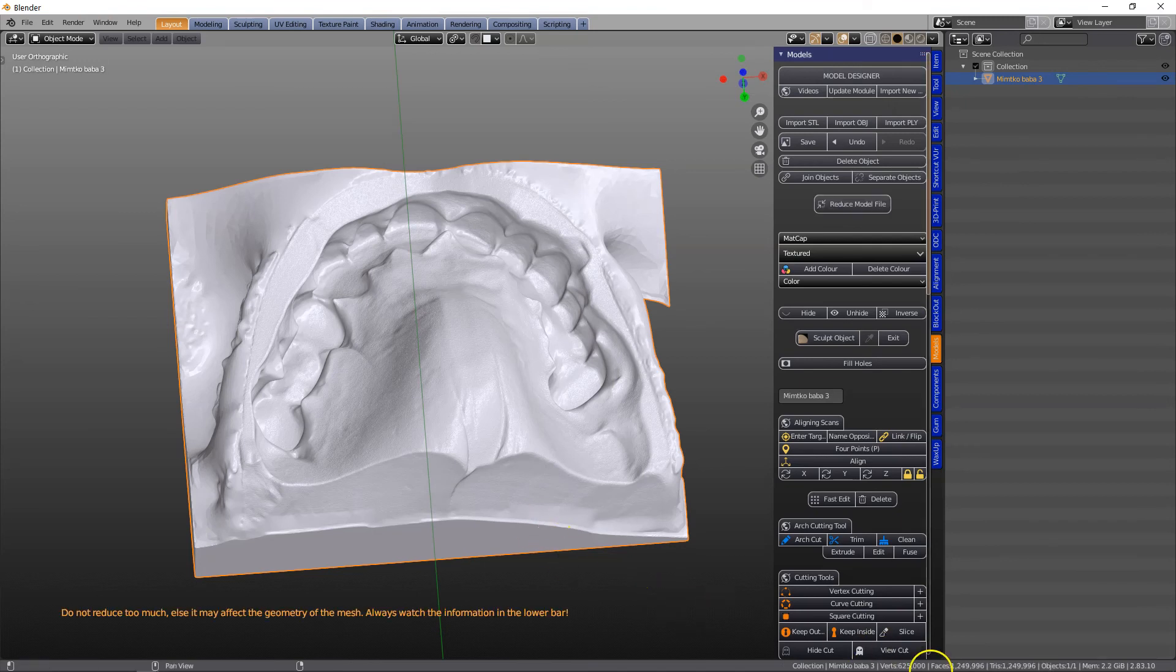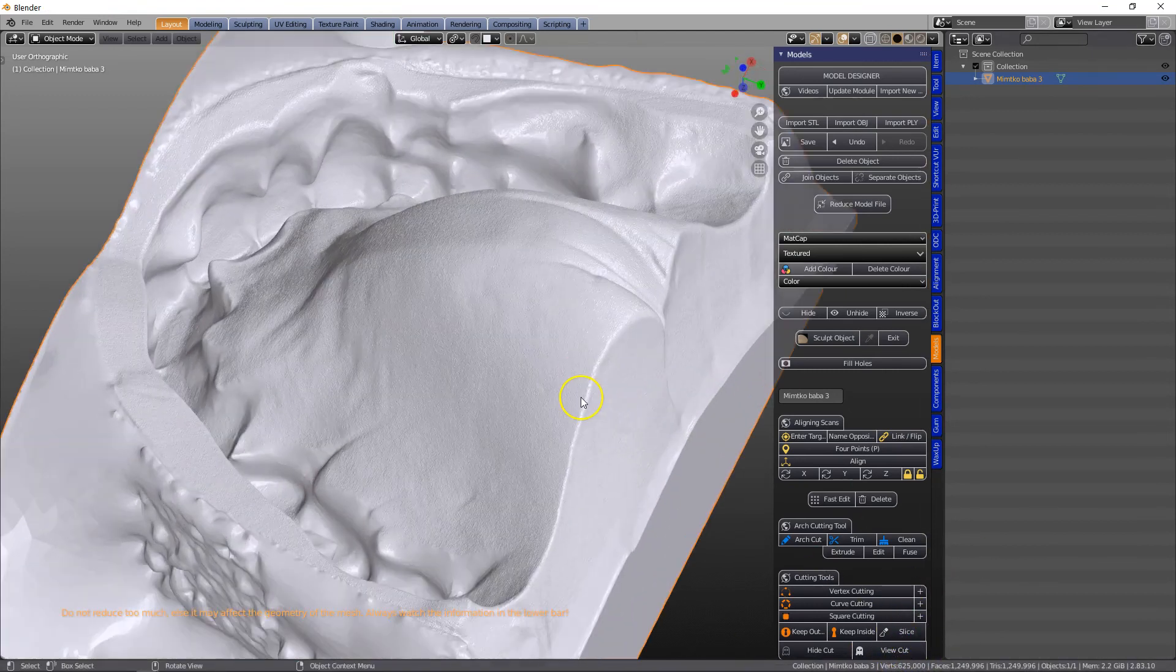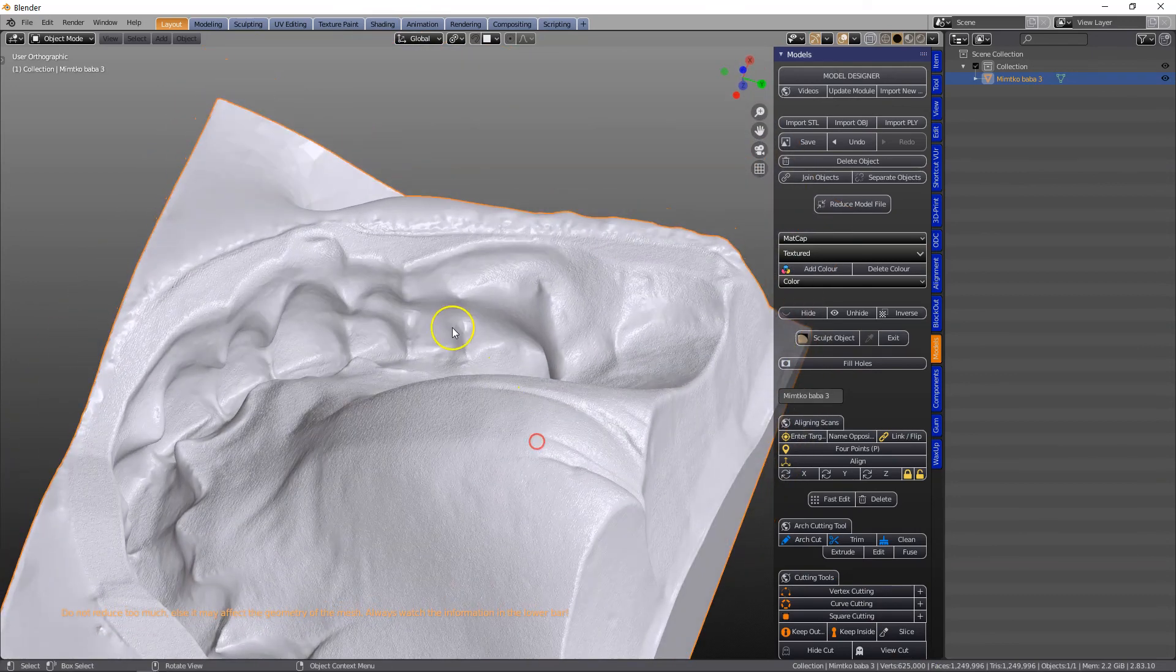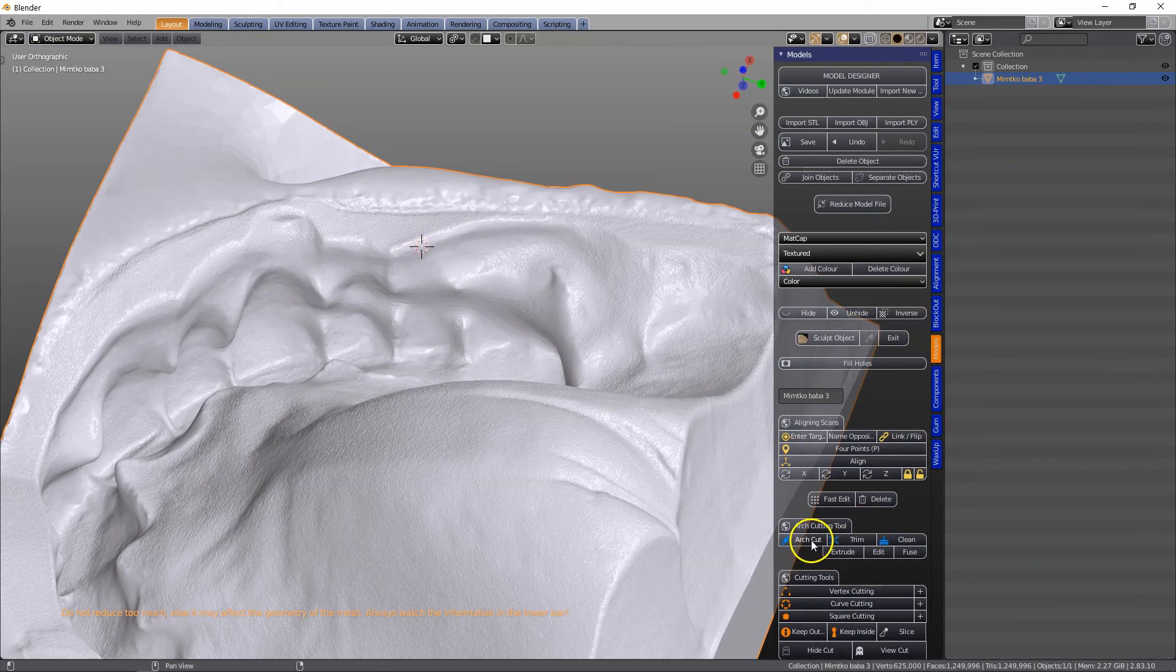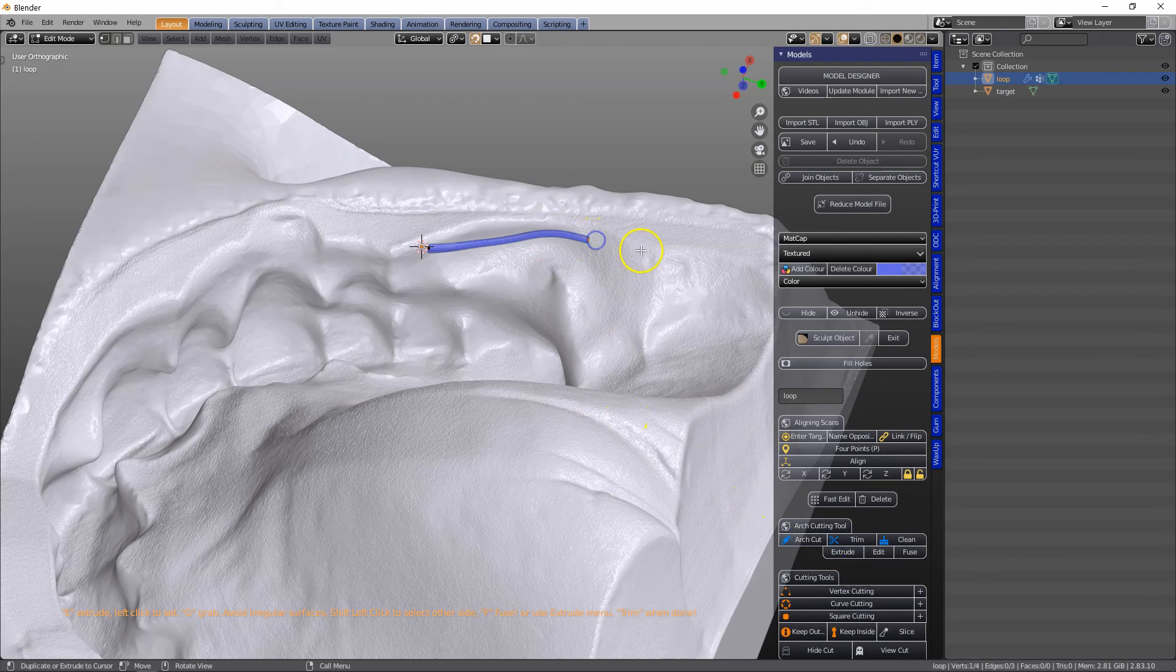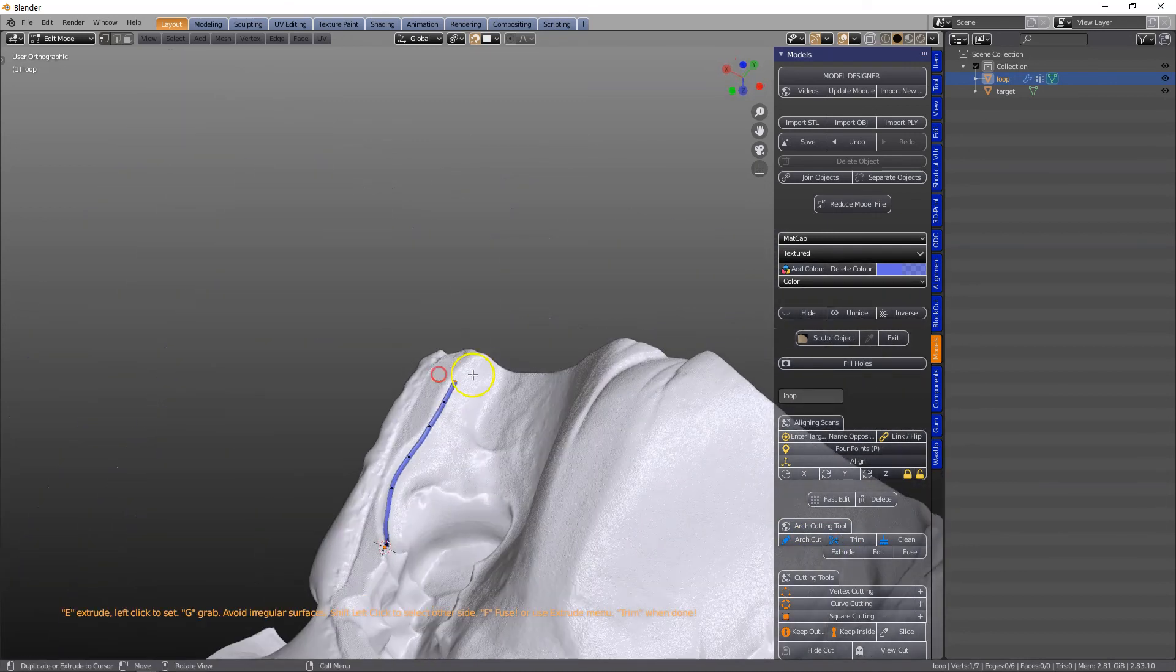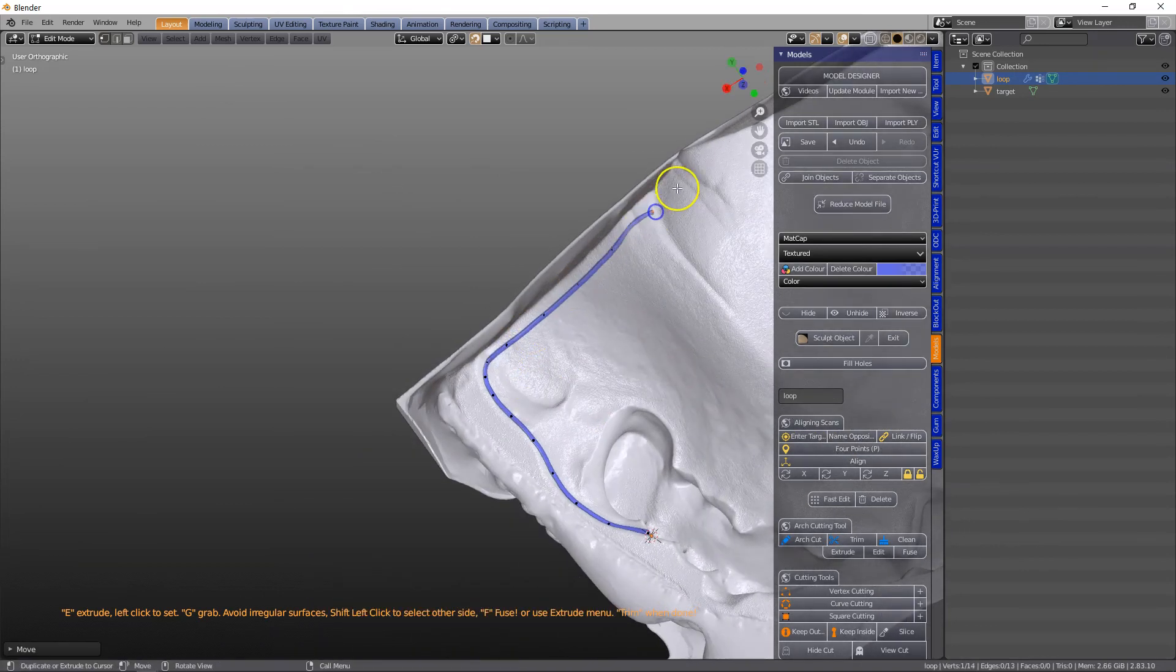This is more workable, 600,000 vertices for the entire object. So what we're going to do is set down our arch cutting tool just around about there, and then we're going to make a line, click on Extrude, and then place it exactly on the inside, and we're going to follow that.